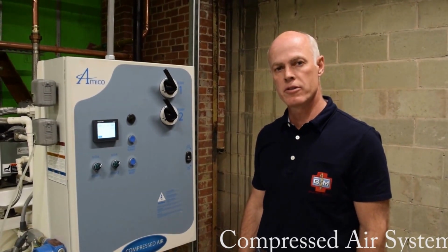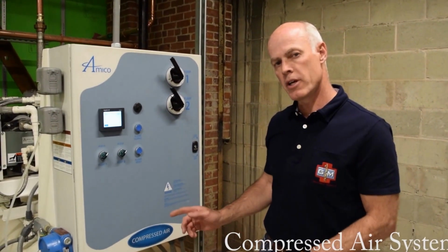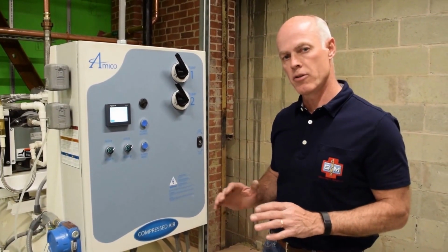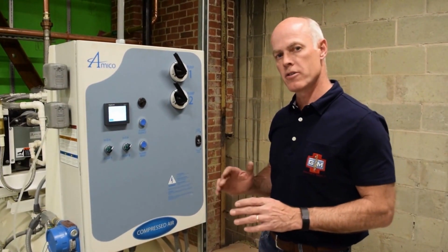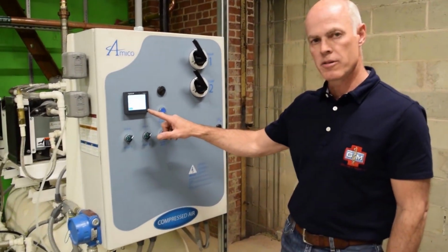Good afternoon. My name is Ken with Granger Medical, and I'm here to do the training on the air system and the vacuum system. We'll start with the air system, and I'm going to give you the level of training that applies to the users and/or the average maintenance person to do daily checks to make sure the system is functioning properly. The first thing you want to focus on is the HMI screen.